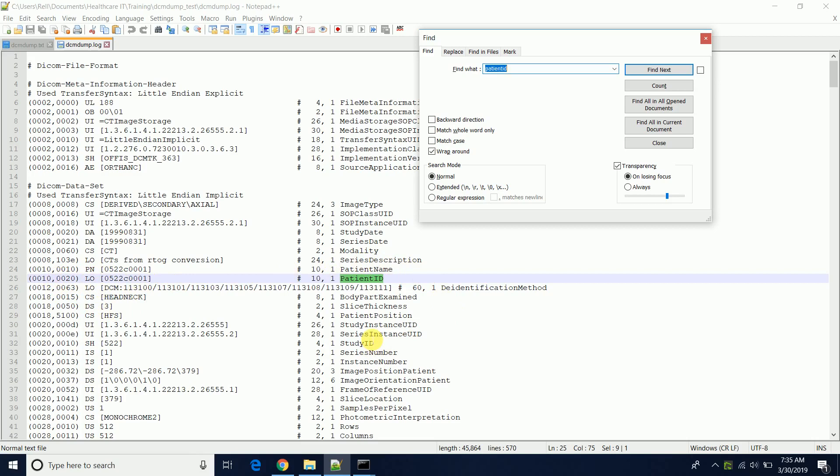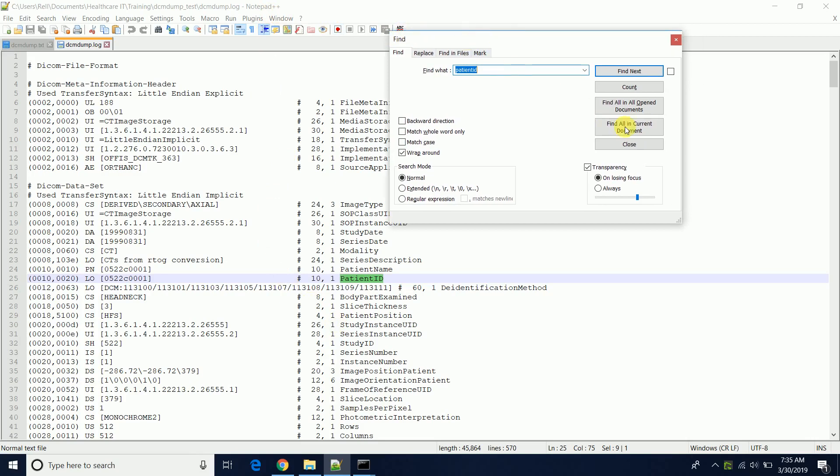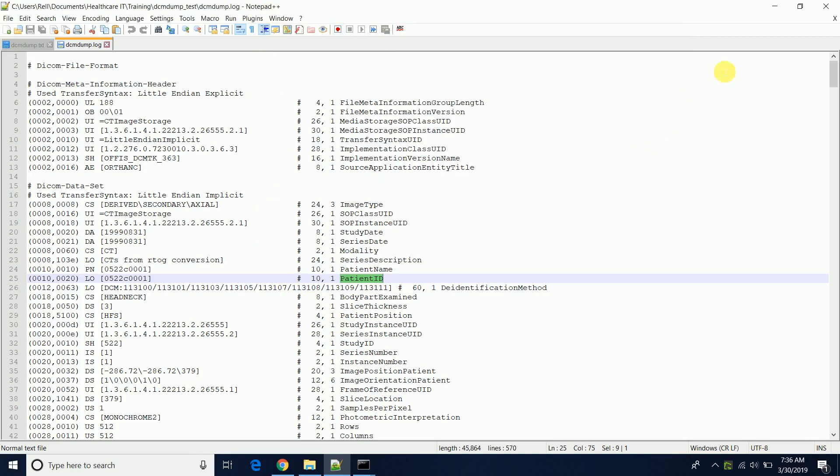To find out certain DICOM tag values or if something is actually being sent over, if it's not being sent over, what type of format is it coming in. And that's helpful for these types of troubleshooting scenarios. So that's just a quick overview of DCM dump and how it's useful, what it can be used for, how it's used.